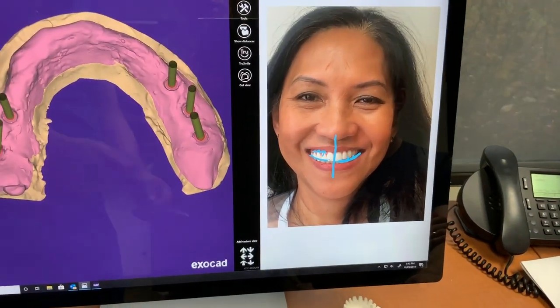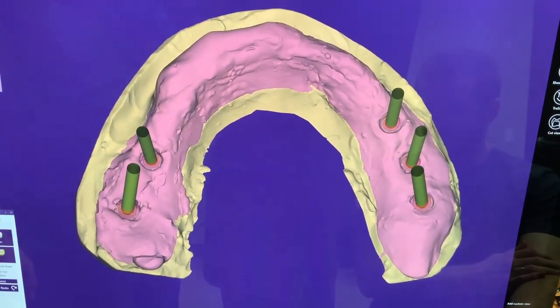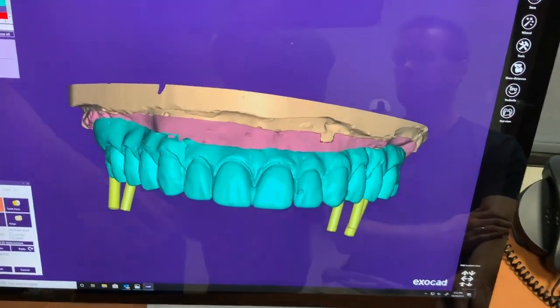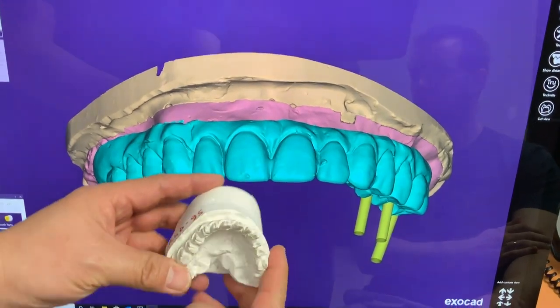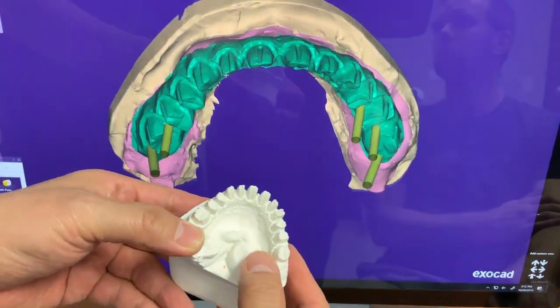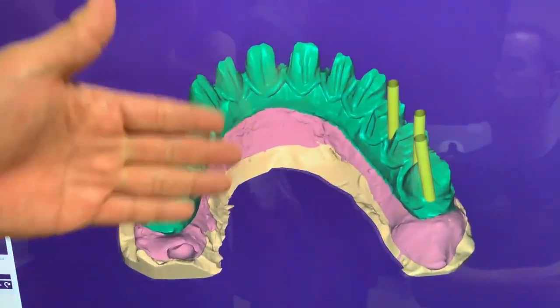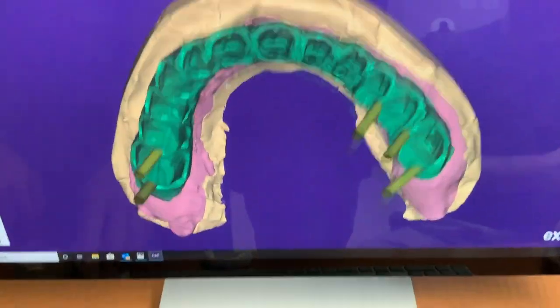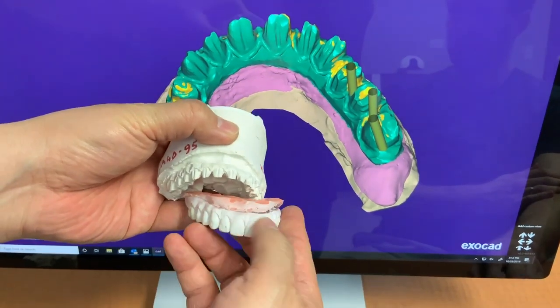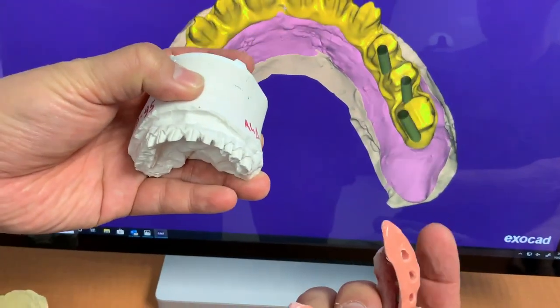Tyler designed it and after that we made a duplicate and prepped it for the seven-star bar, which is item 6500 — top of the line. We just copy, scan, and design, and now it's ready. The wax is a little bit bulky for her, so we're trying to bring it in.